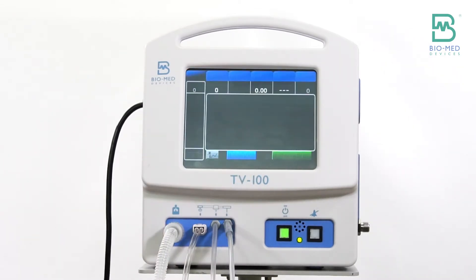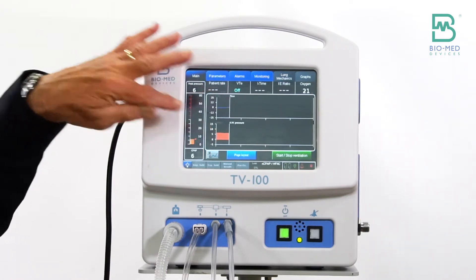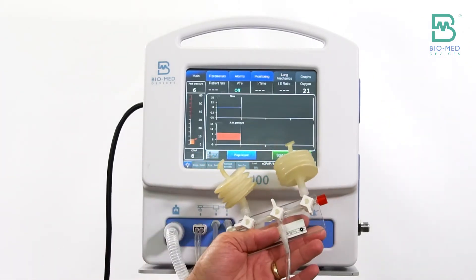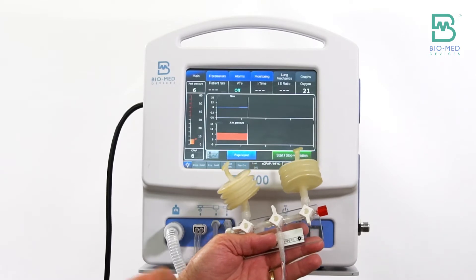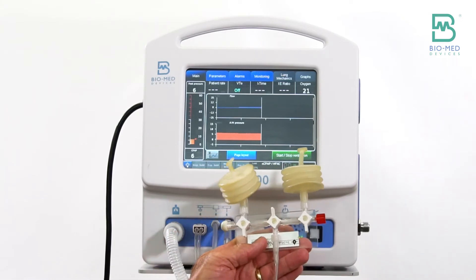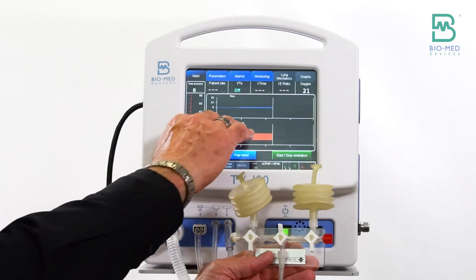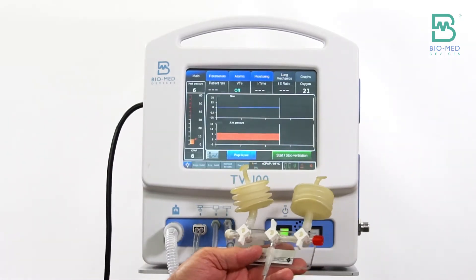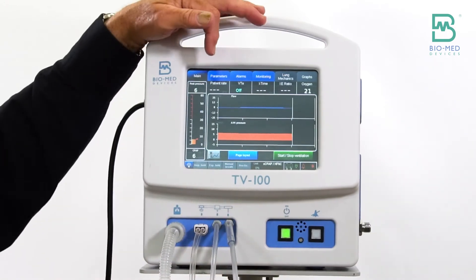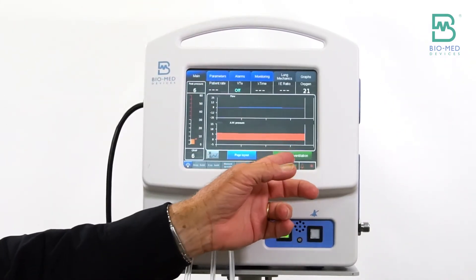If you start ventilation, you'll see that it's maintaining six centimeters of pressure. Now if I open this leak on the test lung, you can see it kind of adds flow to maintain that pressure. If I open up this other leak a little bit more, it always maintains that regular CPAP pressure. That's really it for doing nasal CPAP. Now let's go ahead and stop that.